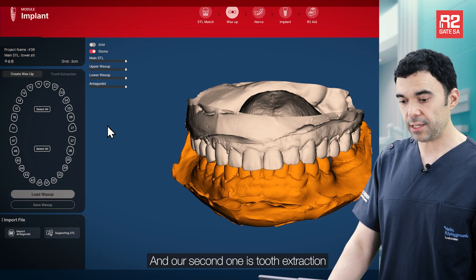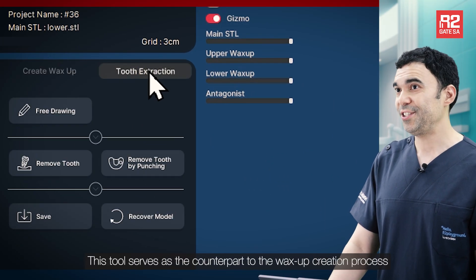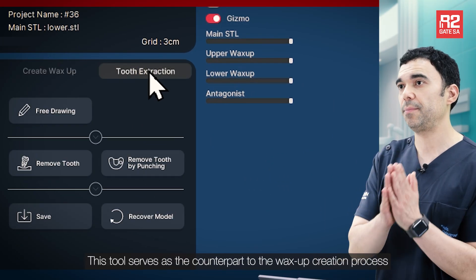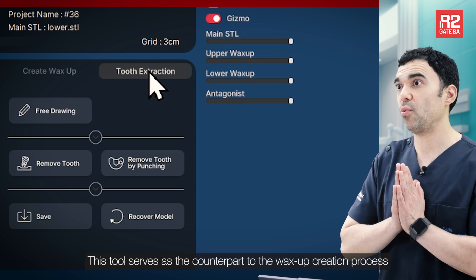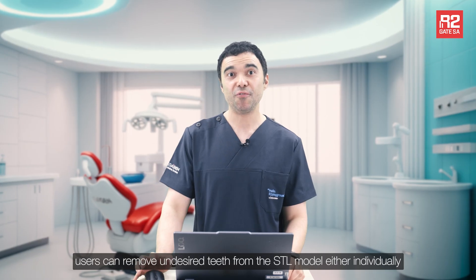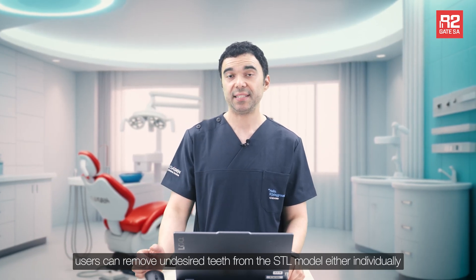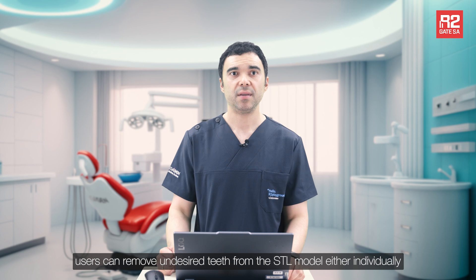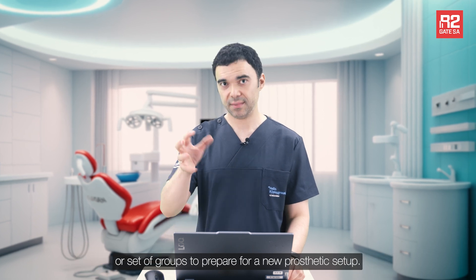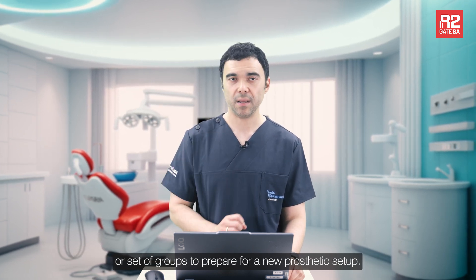The second function is tooth extraction. This tool serves as the counterpart to the wax-up creation process. Users can remove undesired teeth from the STL model either individually or in groups to prepare for a new prosthetic setup.